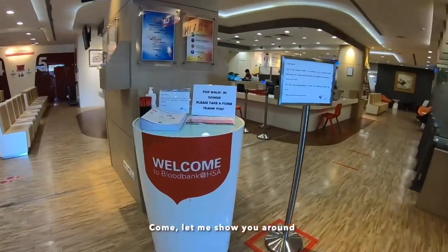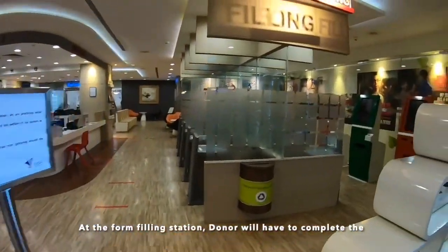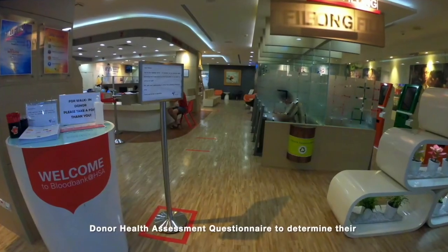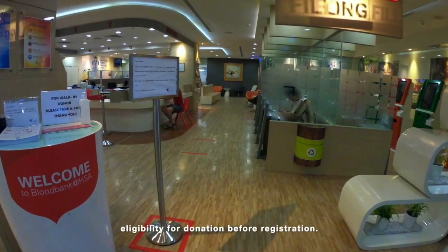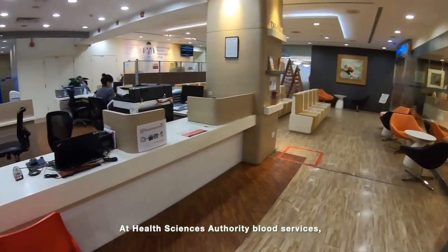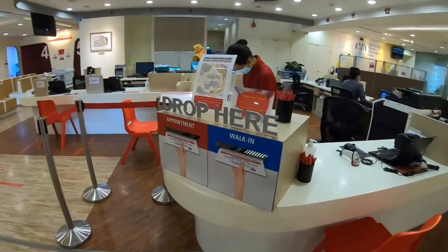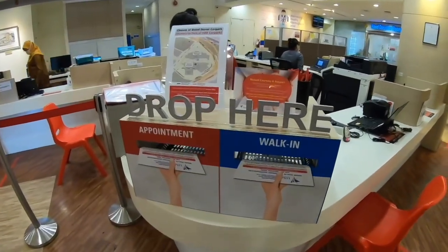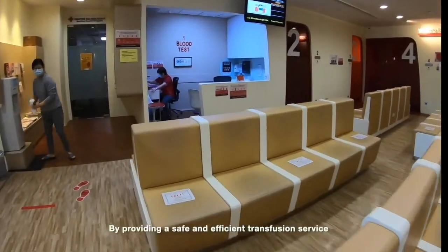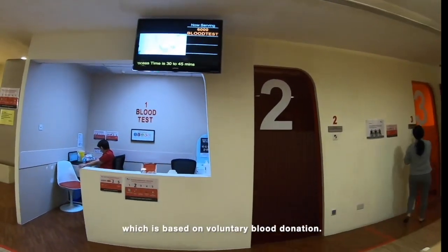Come, let me show you around. At the form filling stations, donors will have to complete the donor health assessment questionnaire to determine their eligibility for donation before registration. At Health Sciences Authority Blood Services, our role is to secure the nation's blood supply by ensuring a safe and adequate blood supply for public and private hospitals, by providing a safe and efficient transfusion service which is based on voluntary blood donation.